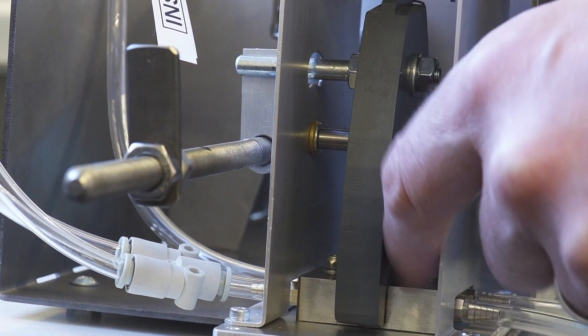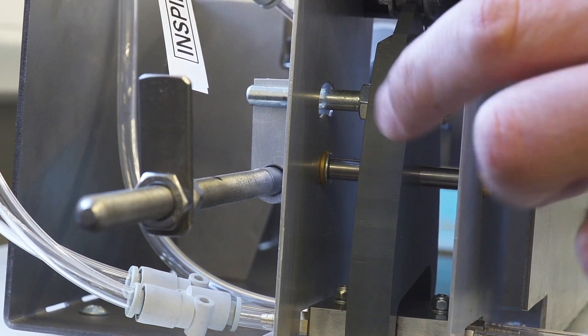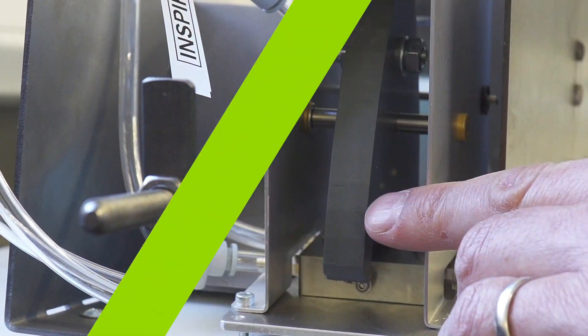So key part of the design was this little valve block. It's two port, one breath in and one for breath out, and it's switched over by a spring mechanism which we'll have a look at.